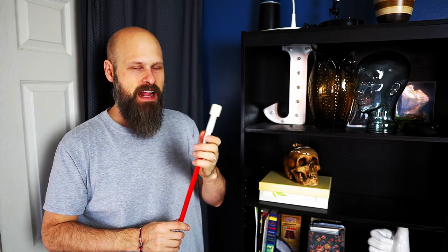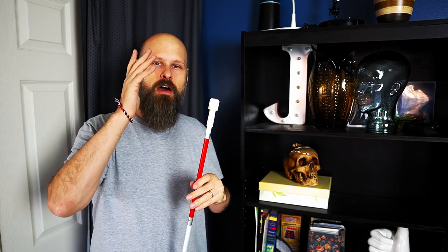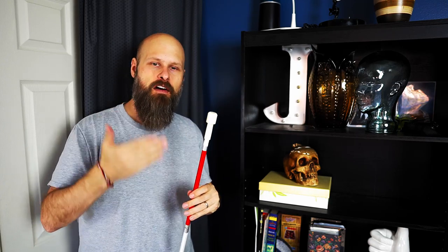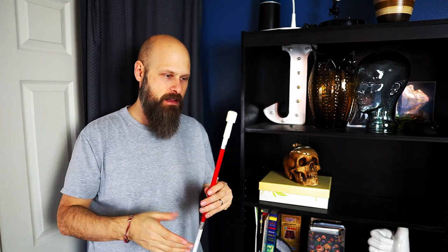So I recently got the question on how to change the tip on your white cane, your long white cane. And it's actually quite easy. Now, one thing to note is that not all canes can change their tips or have the ability to change tips. So you want to make sure, you want to find out first of all if your cane can do this.